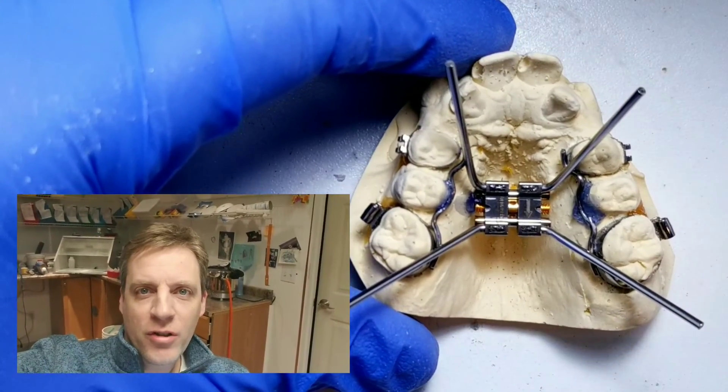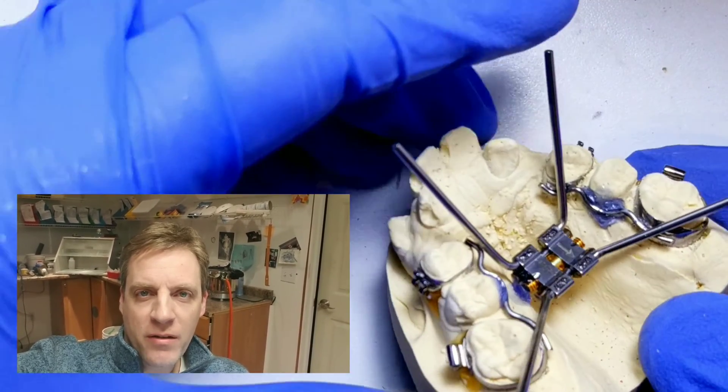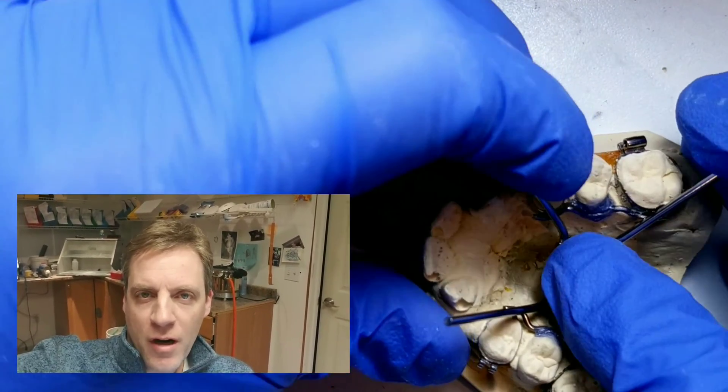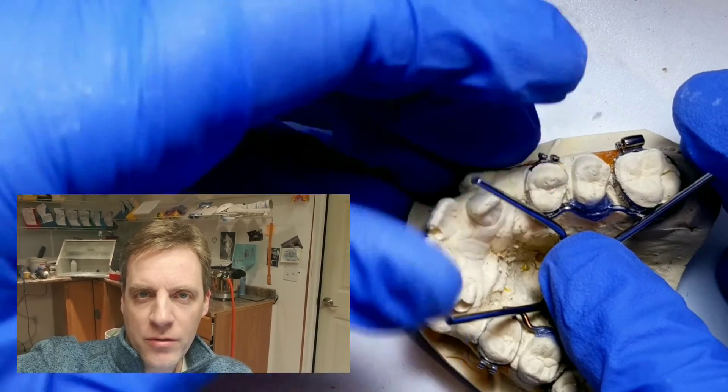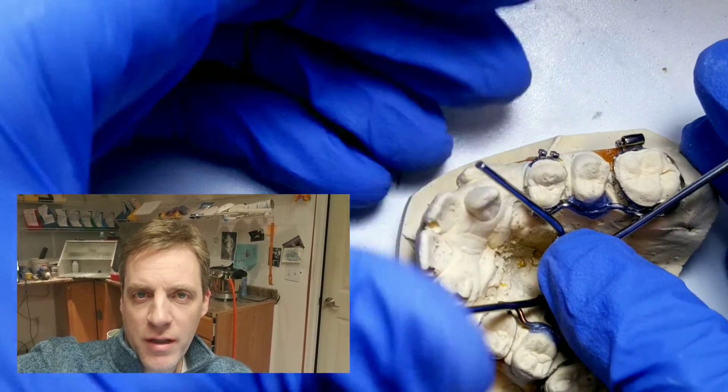Now this is a really cool little nifty trick because my expander has been spot welded so that I can move an arm around if I wanted to put it in the right position as shown.